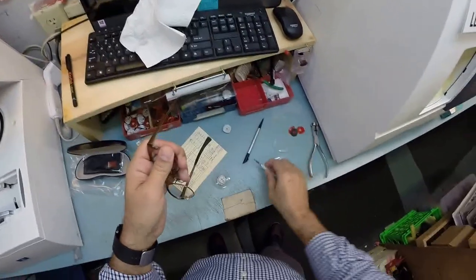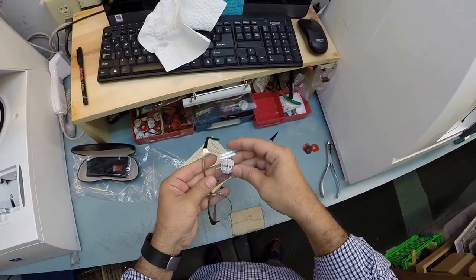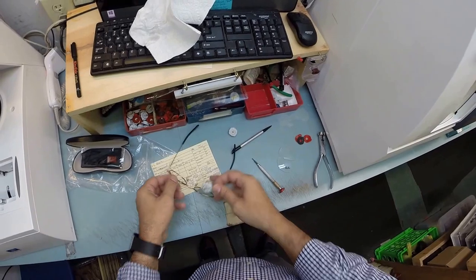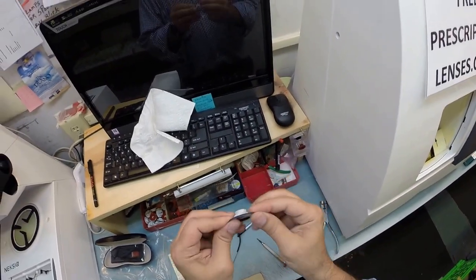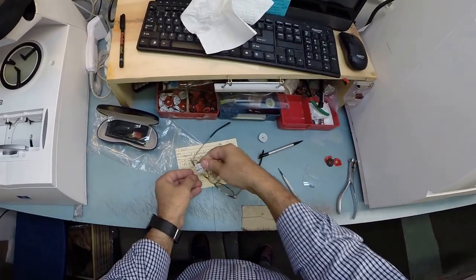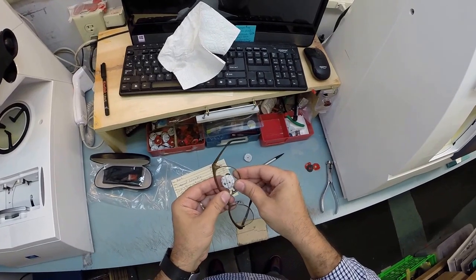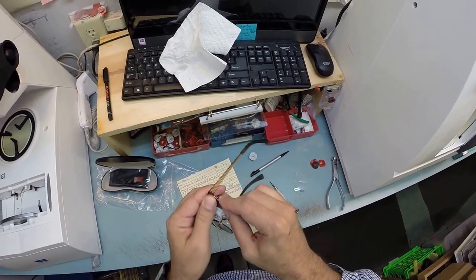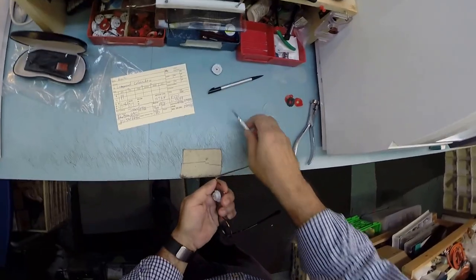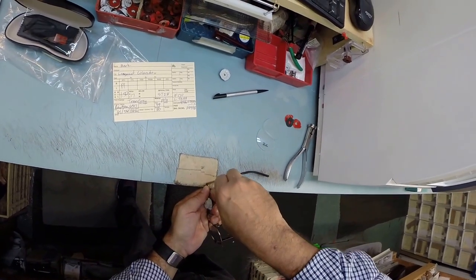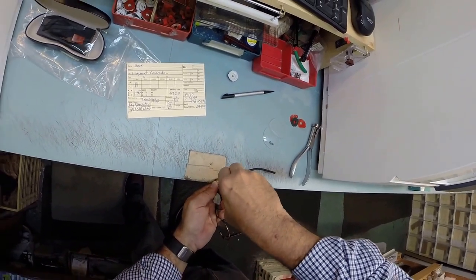So lefty loosey. Let's go ahead and tuck the lens in. Actually let me clean this off. Make sure all the optical debris is away from the edge of the lens. Tuck that in there. Tighten the screw down. And we're good to go.